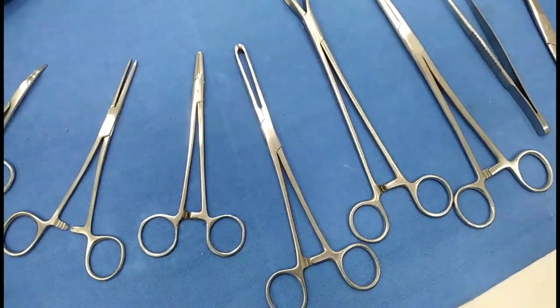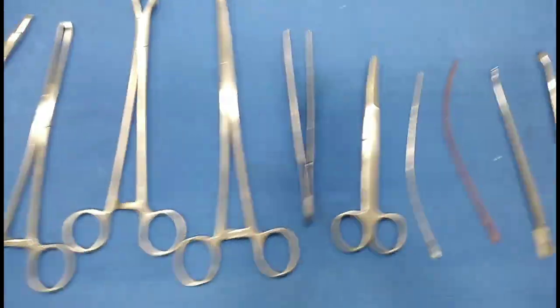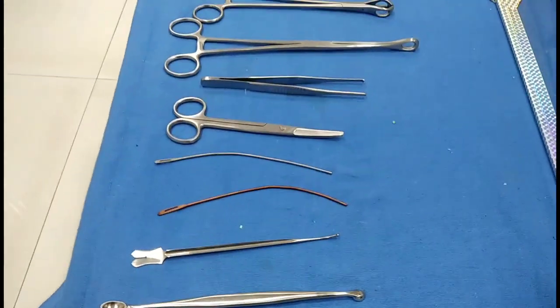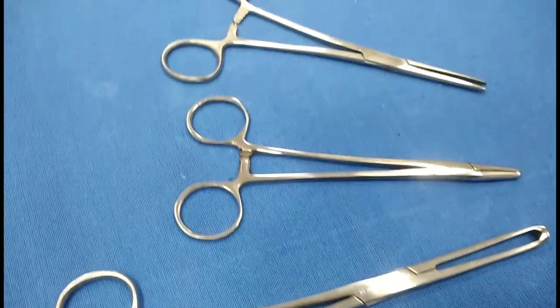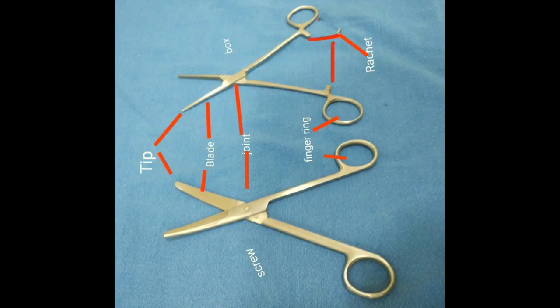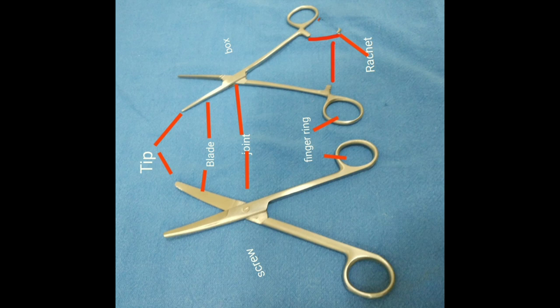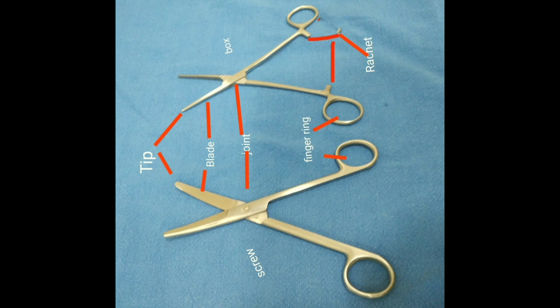Surgical instruments is a very important topic in the aspect of practical examinations, VIVA, and clinical practice. I am Dr. Prashant, and in this video we are going to discuss about some common surgical instruments which are generally used in surgical practice. Let us start one by one.